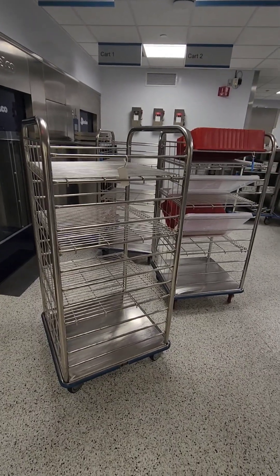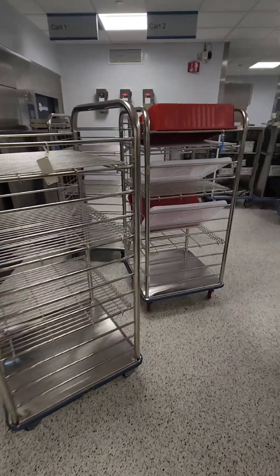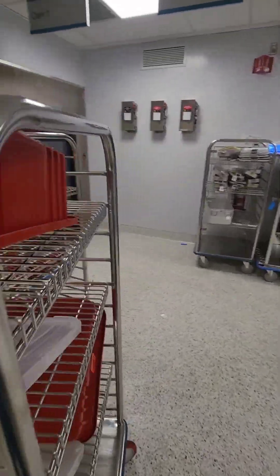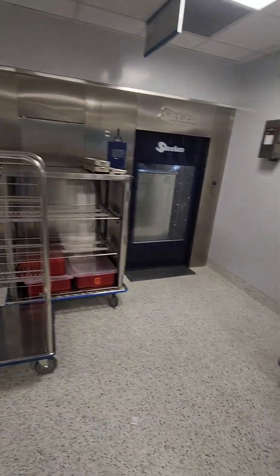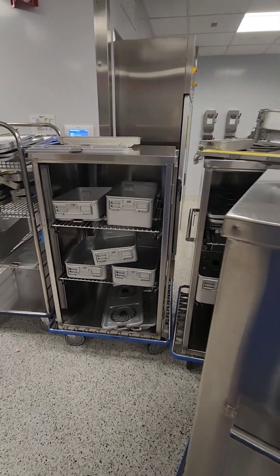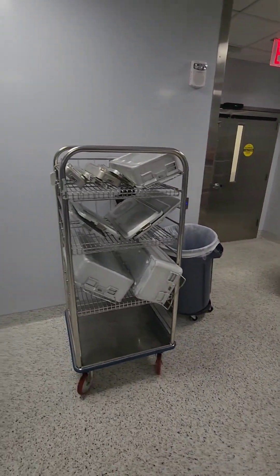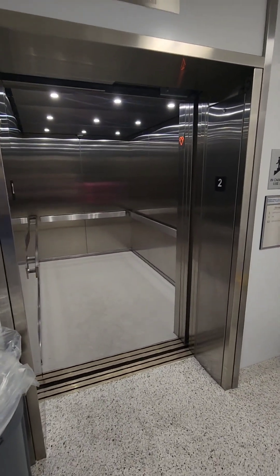What's going on guys, welcome back to WDYD CSP — What Do You Do as a Central Sterile Processor. Let's take a walk in decontamination when it is in its real form. I know many people do videos of decon and show a tray here or there, or a case card here. I want to show you what it really looks like in a decontamination area without capturing too many of my technicians.